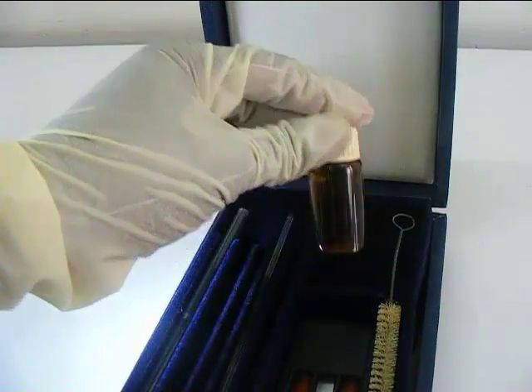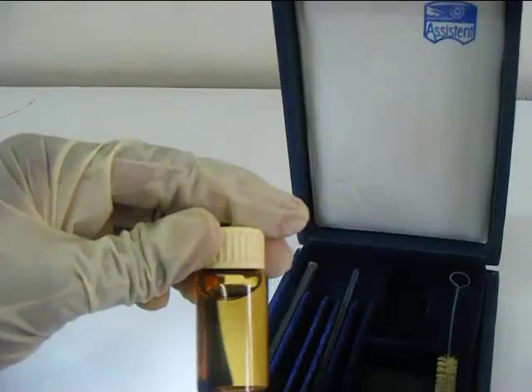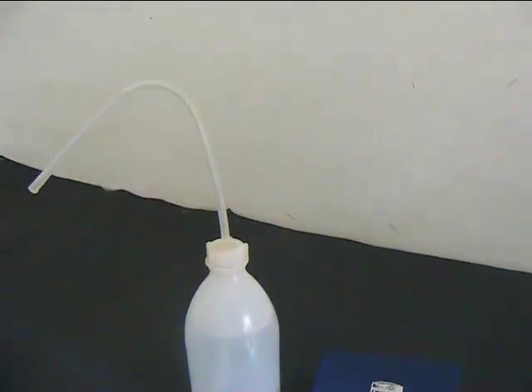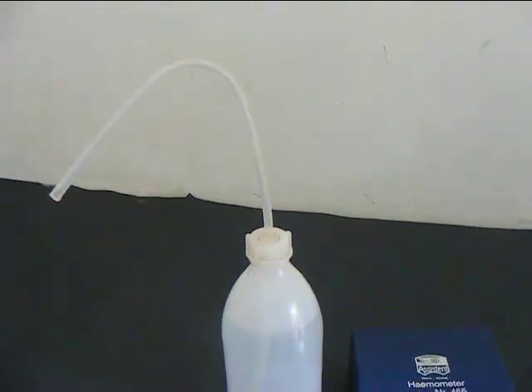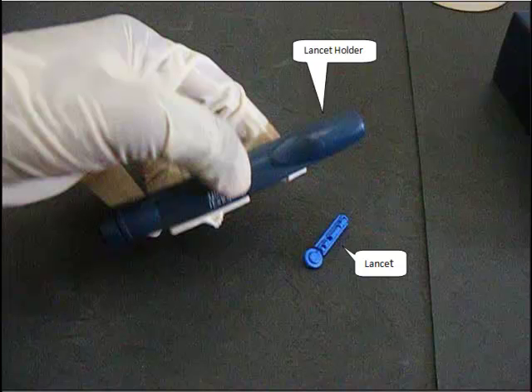An amber colored bottle containing one normal HCl and a wash bottle with distilled water, as well as a lancet and a lancet holder are also required.